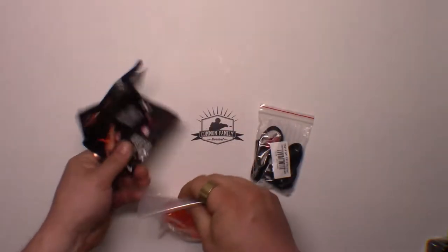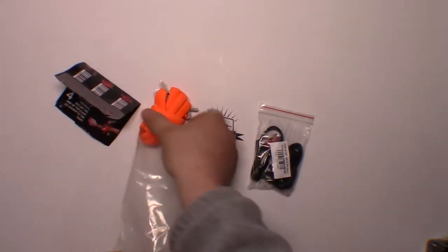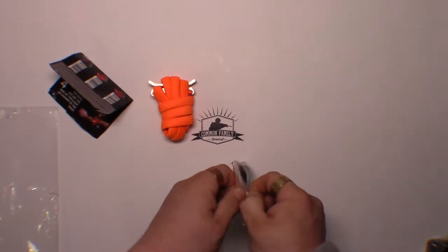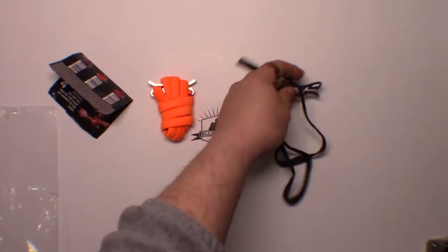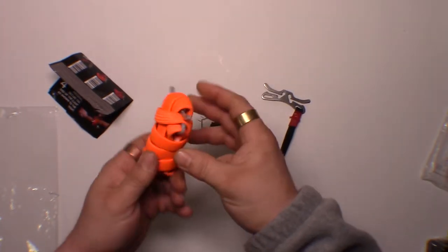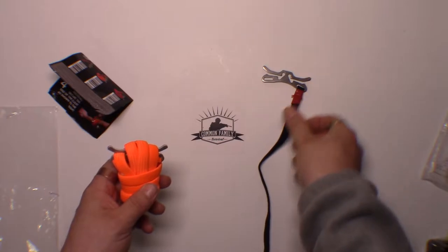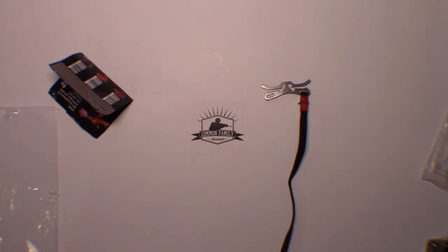Let's go ahead and open it up. Got directions on how to apply it. Now real RATS tourniquets go usually right around $15, and this is a Chinese reproduction RATS tourniquet. Right out of the chute I can tell the difference in quality. These only go for about $15, but this fake one you can get for like a buck or two off of something like Wish. There is a big difference in price, but when it comes to a tourniquet, you're talking about something you might actually have to depend on to save your life.